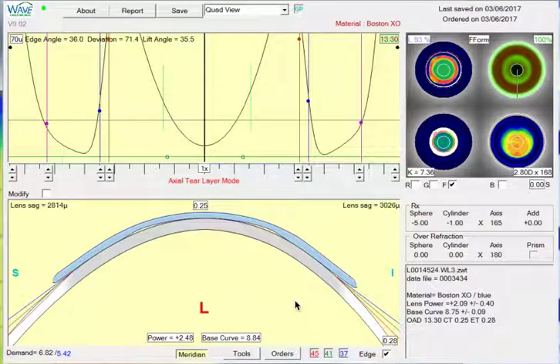In this orthokeratology case, we have a patient whose lens is decentering quite a bit, even with a corneal scleral, and there is quite a bit of edge lift on this lens.